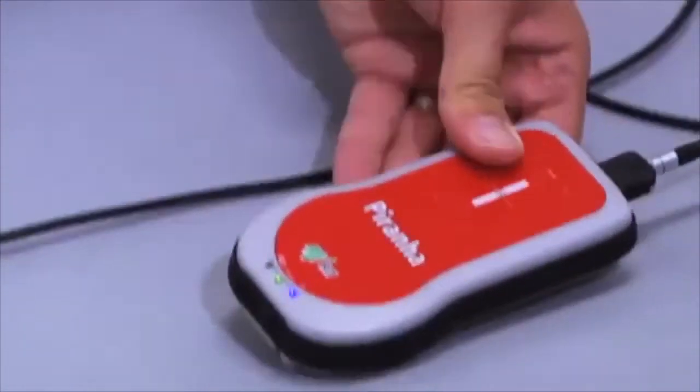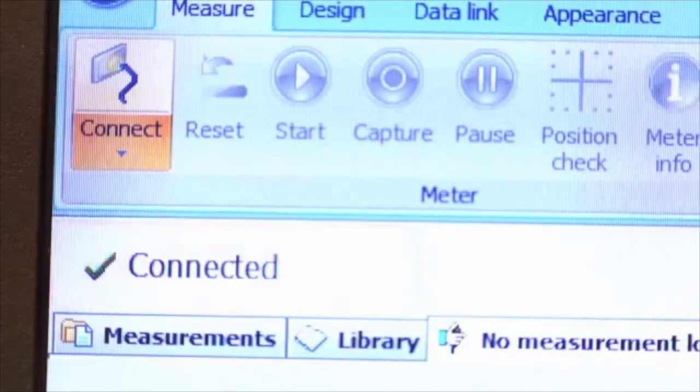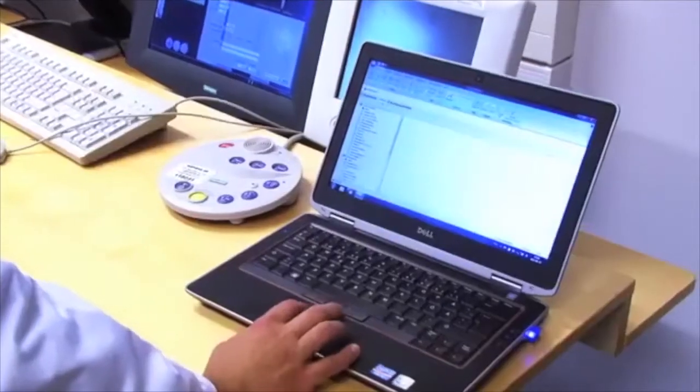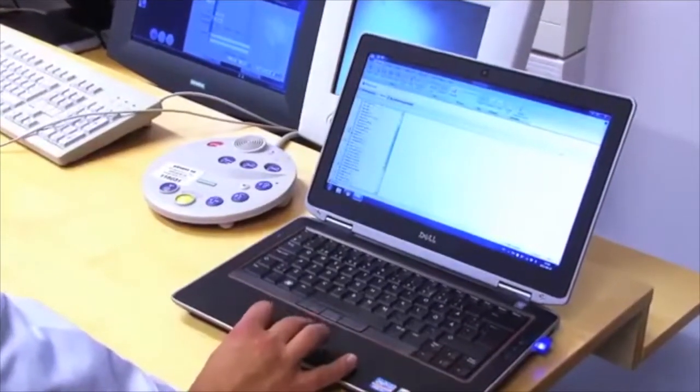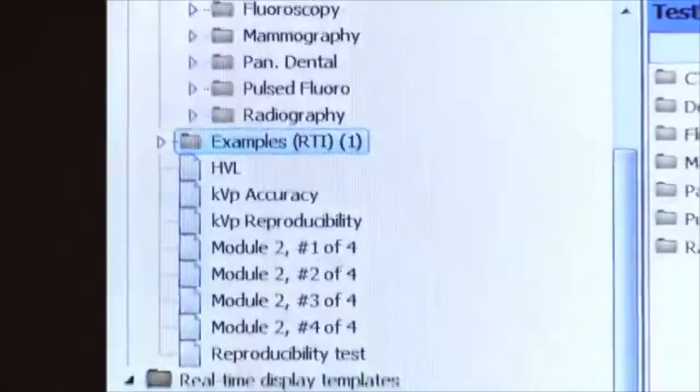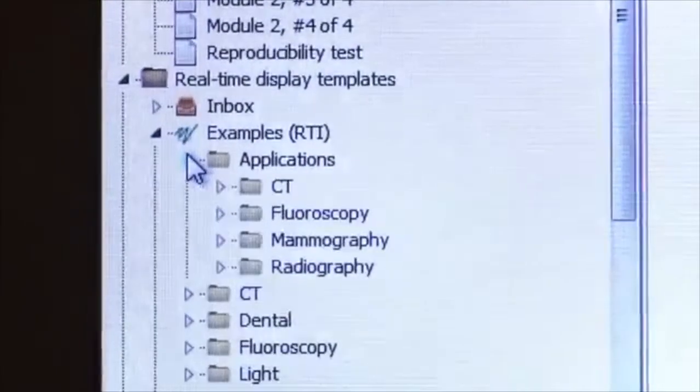Connect the Piranha to the Ocean software. The following steps only need to be carried out once. These settings can be used once again when you, for instance, carry out next year's measurement.